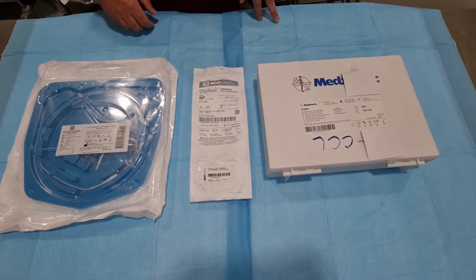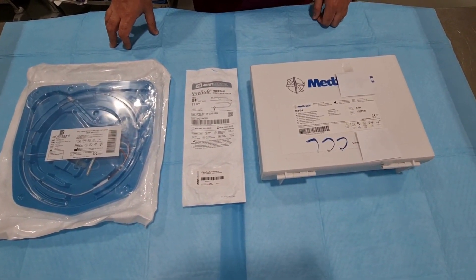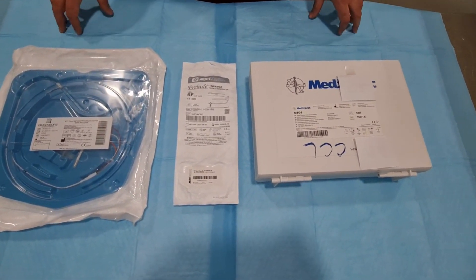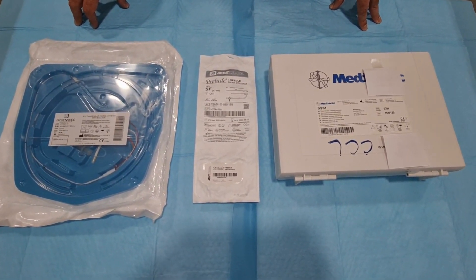Hello everyone, you are watching my YouTube channel Heart to Heart Invasive Cat Lab. In today's video, we are going to talk about the external pacemaker or temporary pacemaker, the preparation and the use of the external pacemaker.